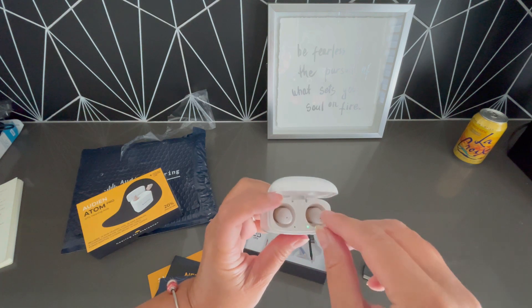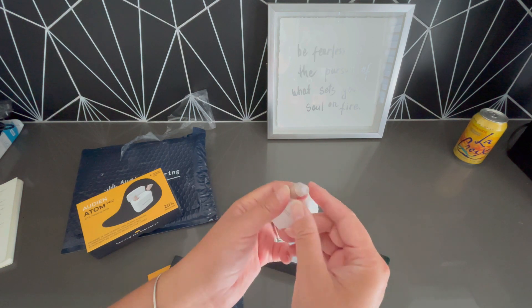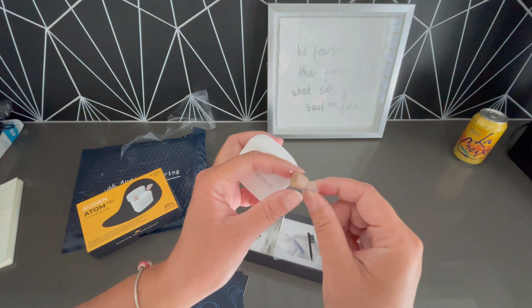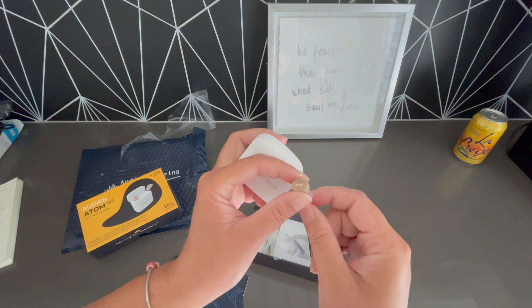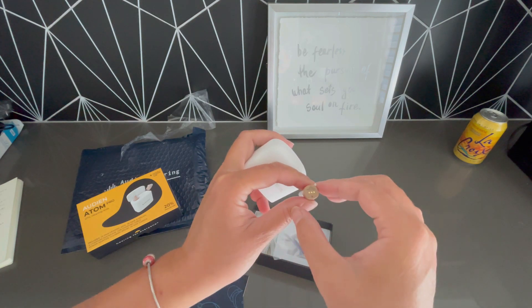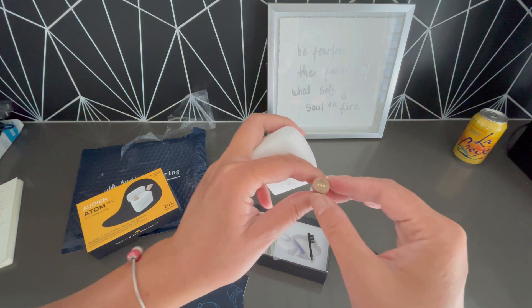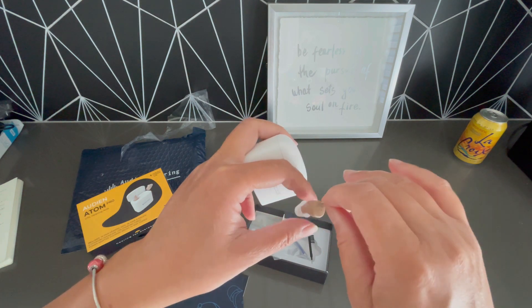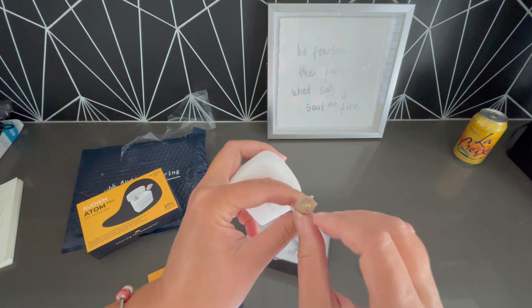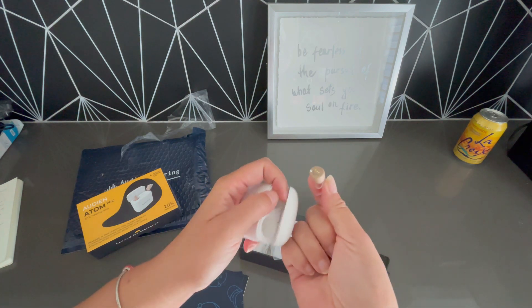Very much like iPods — needs to be charged. This little plastic thing is to make sure it fits comfortably in your ear. This style goes into your ears completely, so it's not like you have a Bluetooth speaker hanging off the back of your ear. This is apparently to help pull them out, and you can adjust the noise level on this one, which is one of the reasons why I chose it.